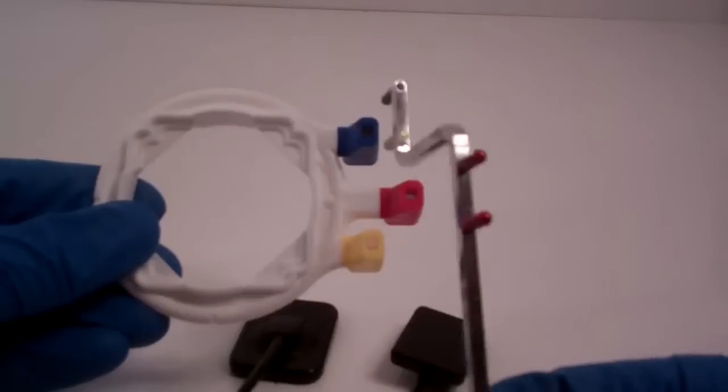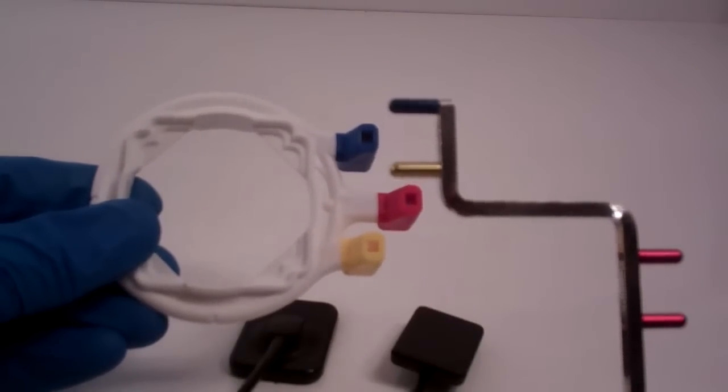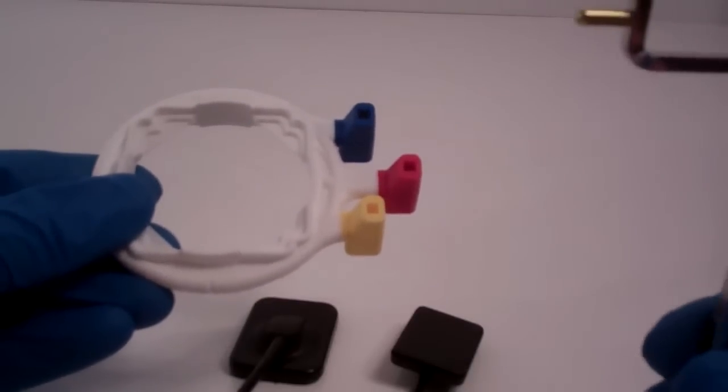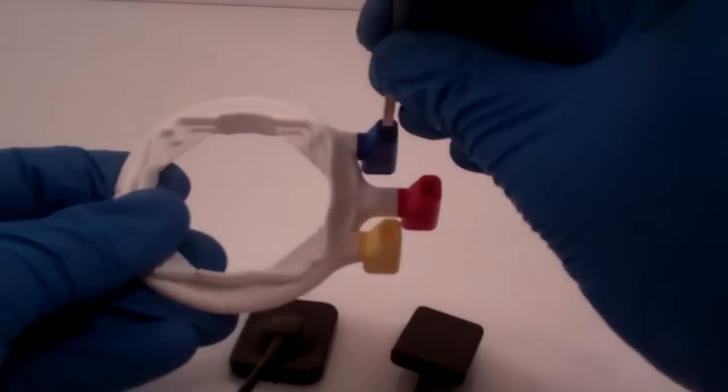or the shared blue and yellow pins now for anterior and posterior, are going to be facing the other direction of the colored receiver on the ring.